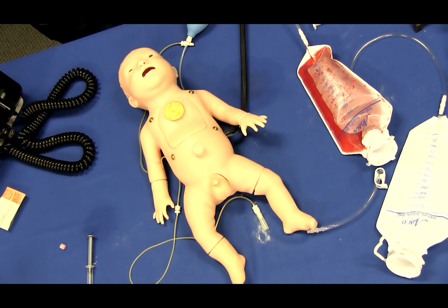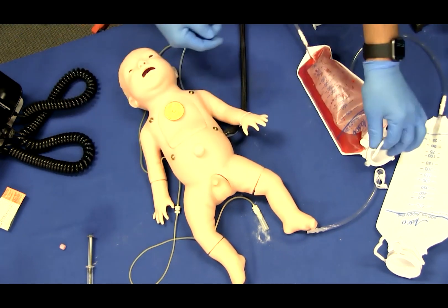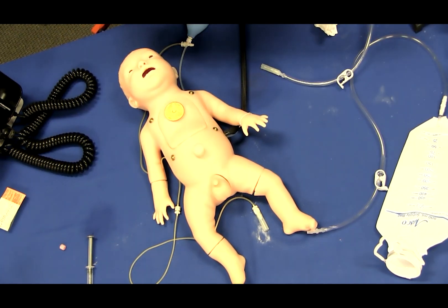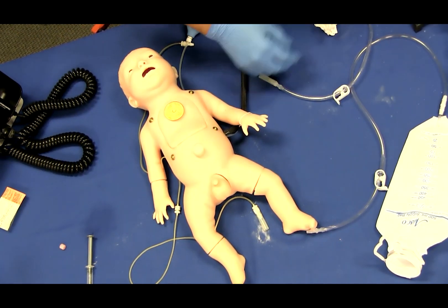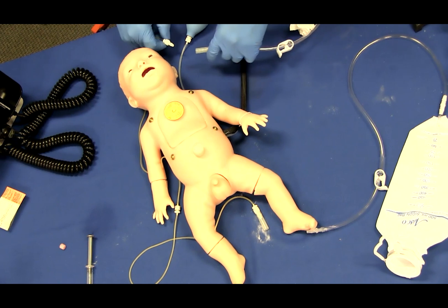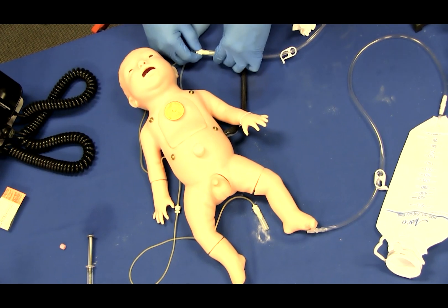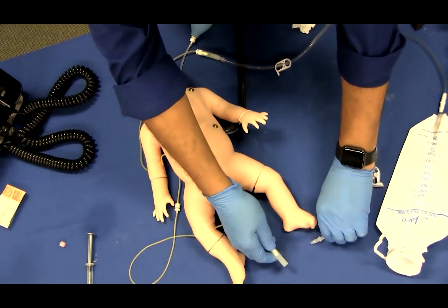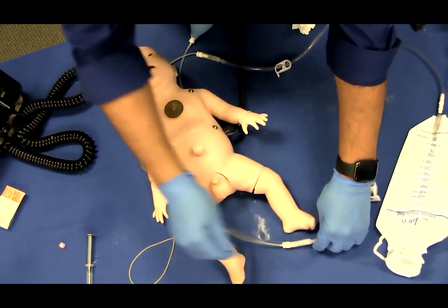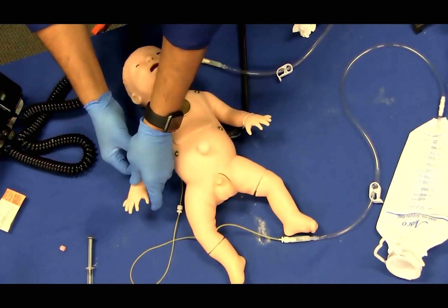Performing intravenous injections and blood withdrawals. Charlie's right hand and right foot are equipped with functional IV access and infusion practice ports. Follow all included instructions to prepare for injections, infusions, and withdrawals as identified in the instruction manual.